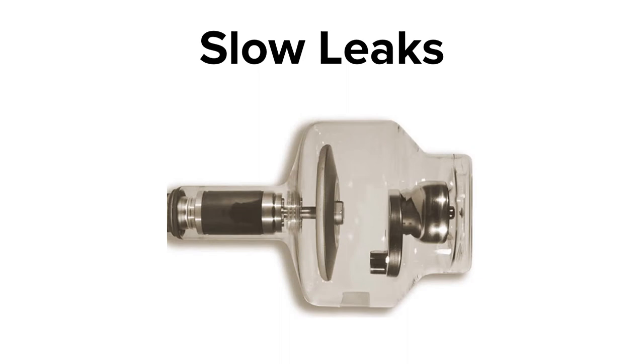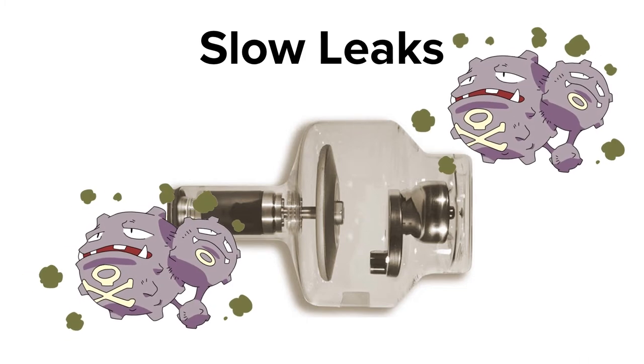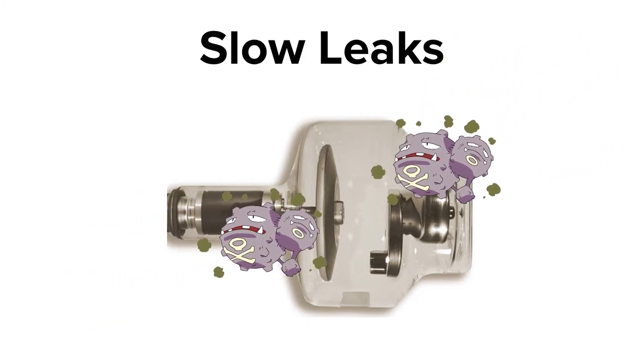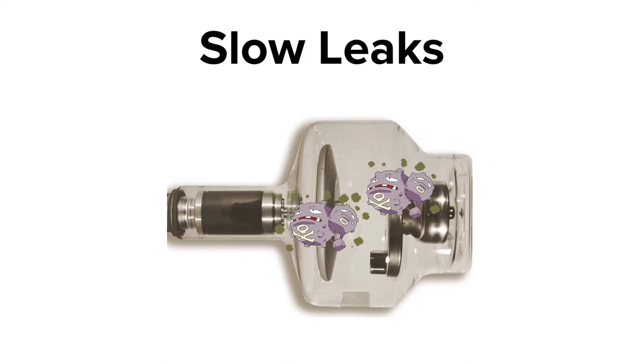When I talk about slow leaks, I'm not talking about the slow vegetable. I'm talking about physical damage or degradation of the tube or its surrounding hardware, which causes gas to slowly leak into the x-ray tube. All of the components inside the glass enclosure of the x-ray tube are sealed under extremely high vacuum.